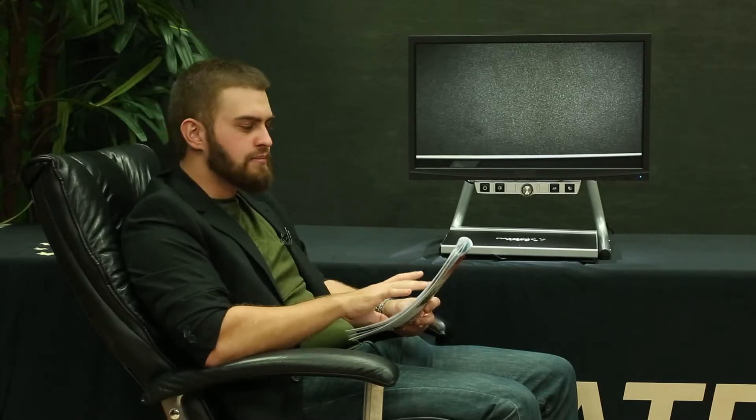Hi, my name is Charles Palmer with Patriot Vision Industries. Today we're going to go over a product called the Patriot Titan, and this machine is a desktop machine that enables a legally blind person to be able to read printed material again.